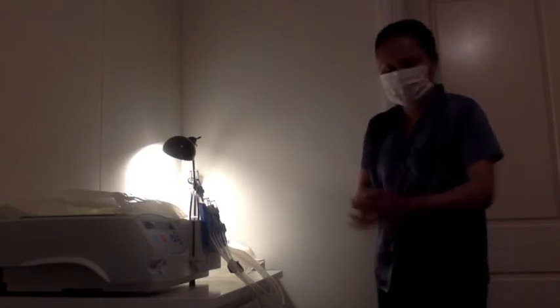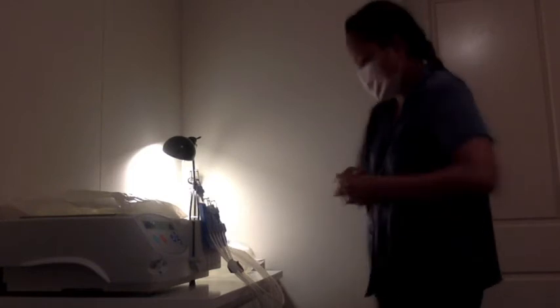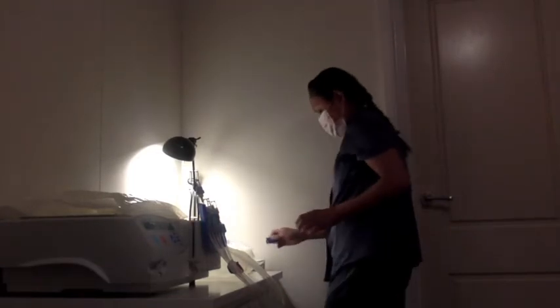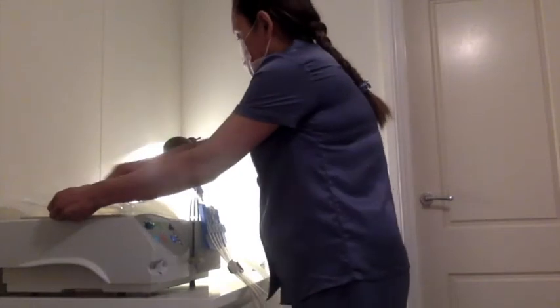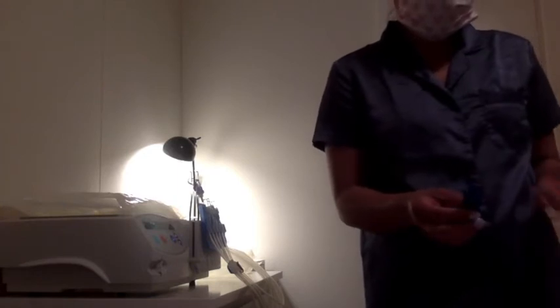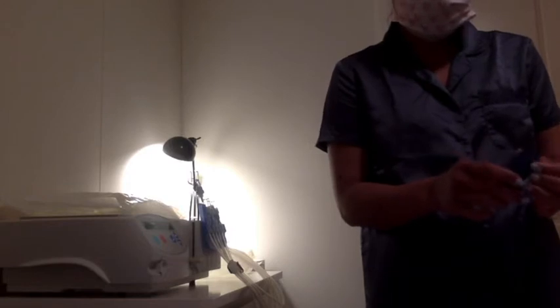It says connect bags — open the clamps — so I'm going to do that. I have my bags here. I don't know what they use in which country, but here this has been trained: we can use this because it says it should be safe. The bags are supposed to be pretty strong, but just try not to press too hard or poke too hard on them. Now I'm going to open the bag.